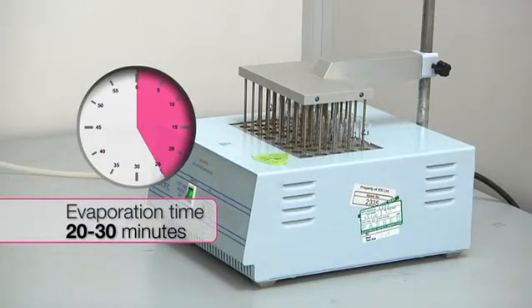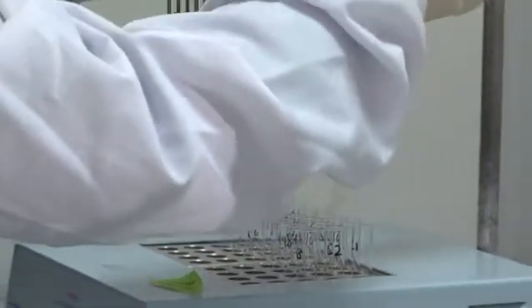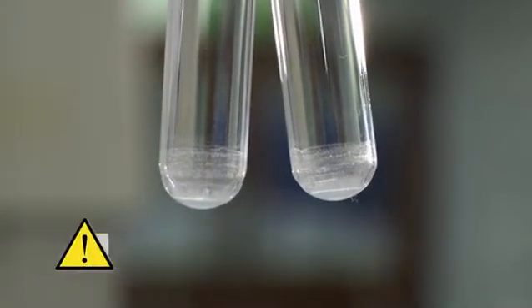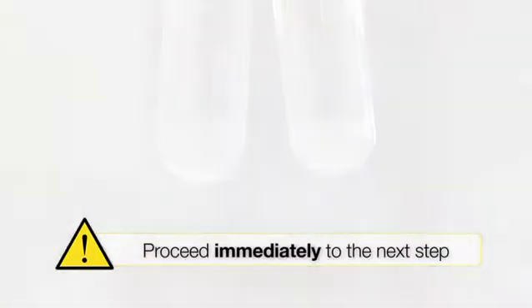Once evaporation is complete, this should leave a white residue of buffer salts inside the tubes. Ensure the tubes are dry.